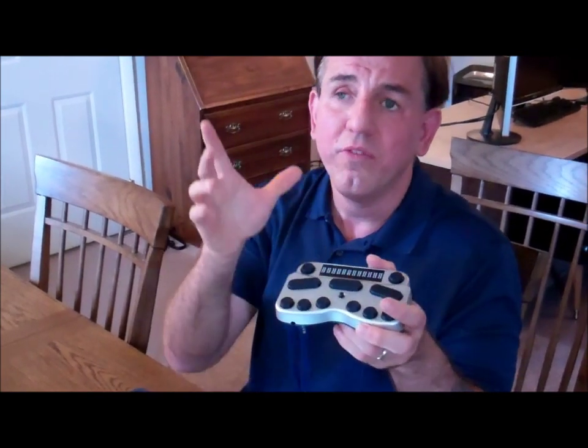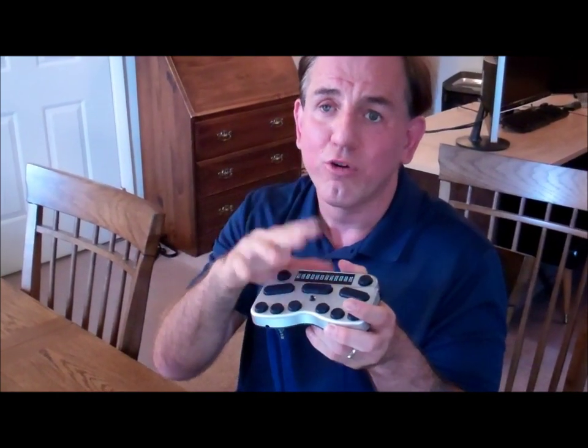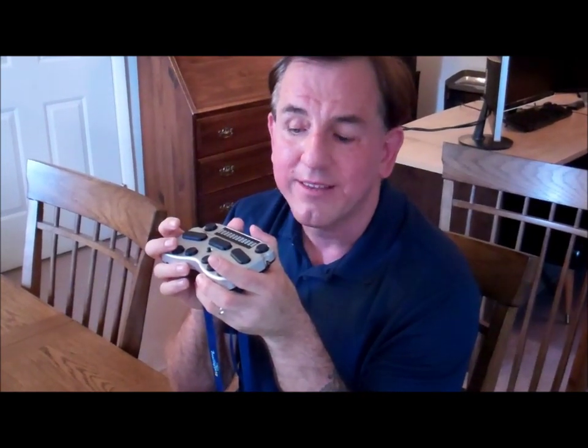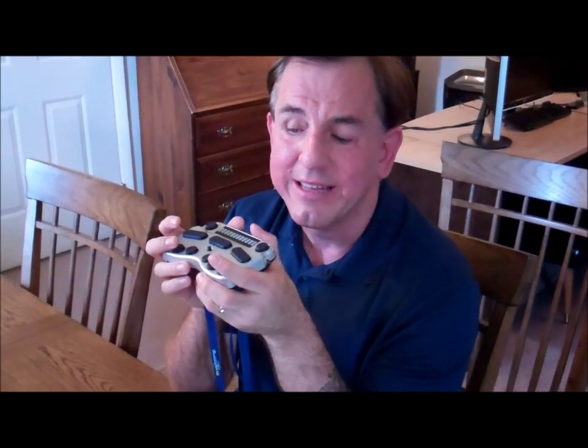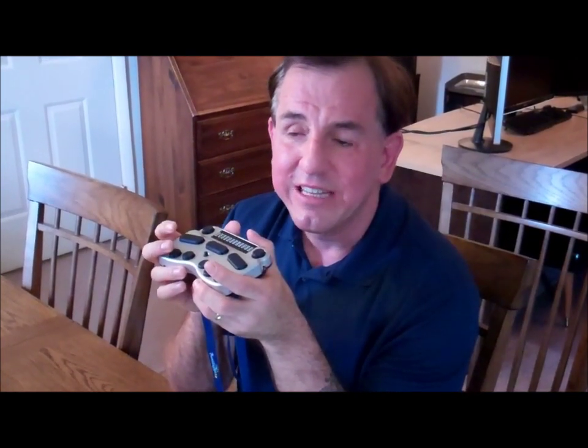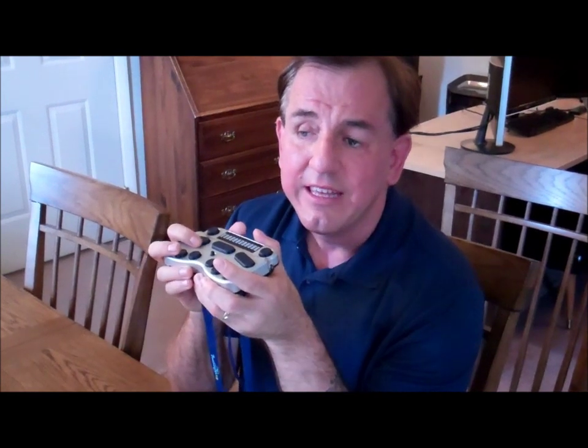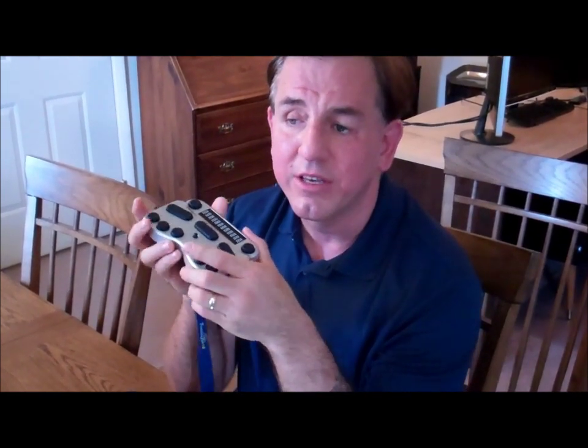This is exciting portable technology because when it's bundled with products like the iPhone and iPad, it really transforms that touchscreen into a real productivity tool because we're using a lot of the note-taker know-how that so many of us grew up with.